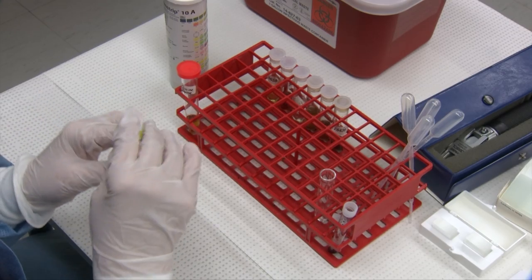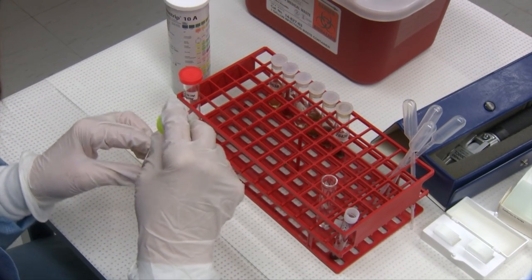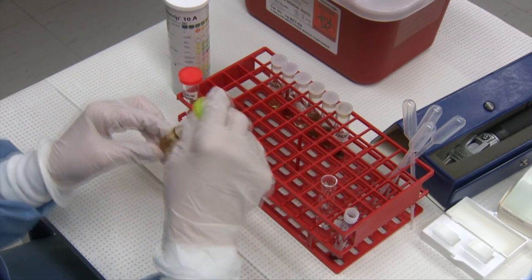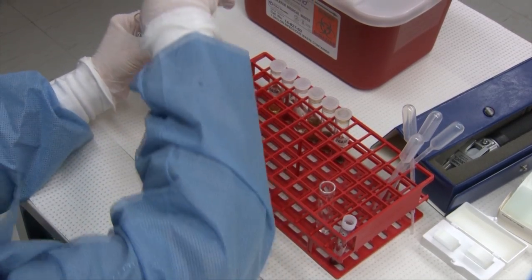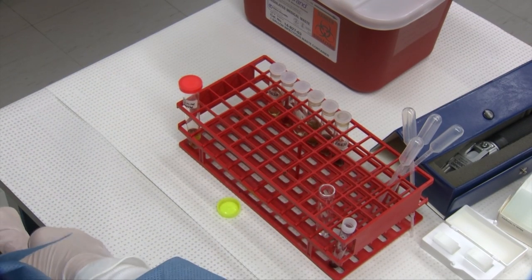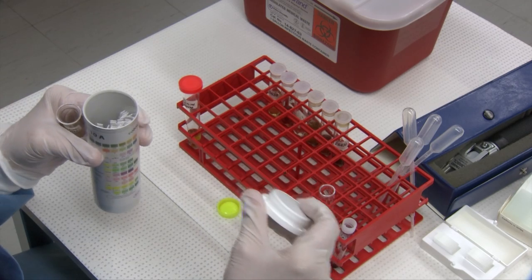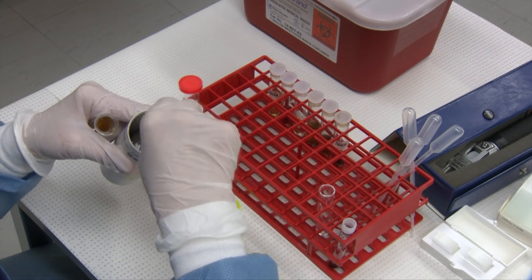To start a urinalysis, you want to just gently mix your urine — you don't want to shake it. Take one of your urine strips. The strip container has a desiccant in the lid which keeps your strips dry, so as soon as you remove a strip, you want to put the lid back on.